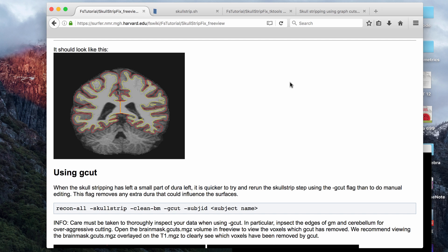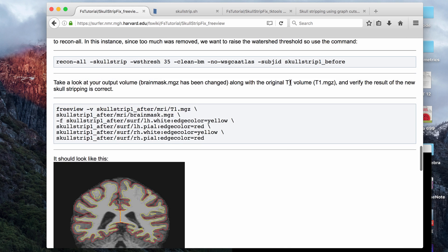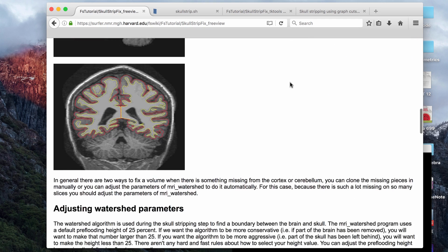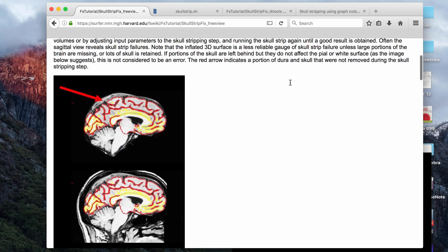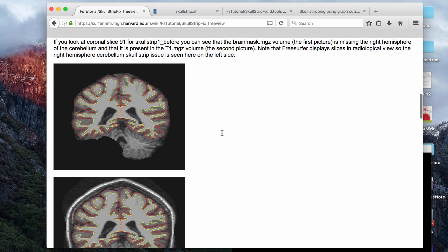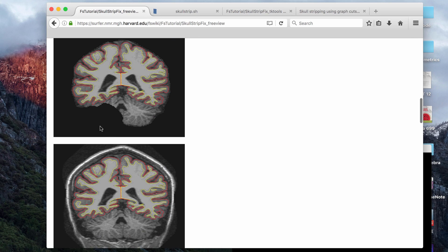If you think you have a large problem, I would try a couple commands to fix it first and then do manual edits. Like I said in the previous videos, there are basically two main problems. You can either have too much non-brain tissue left behind on the skull strip, or you can have a skull strip that removed part of the brain.